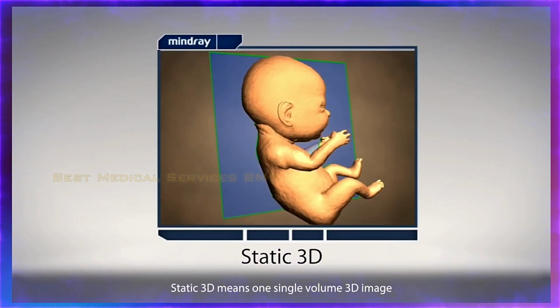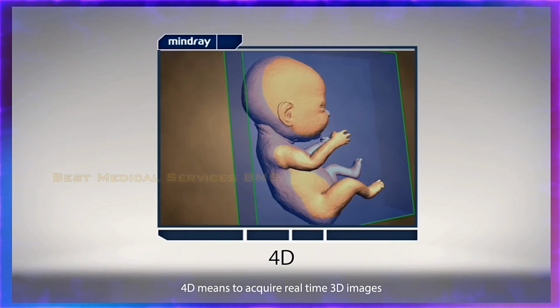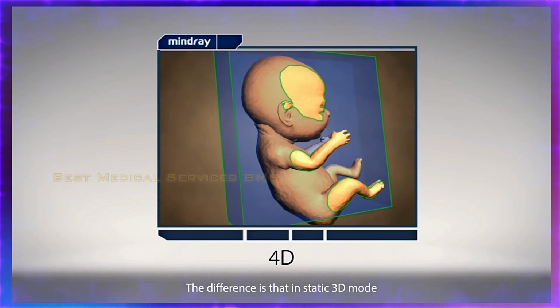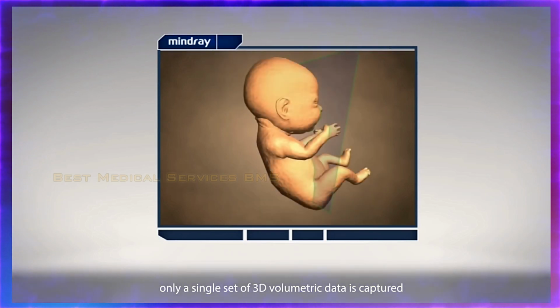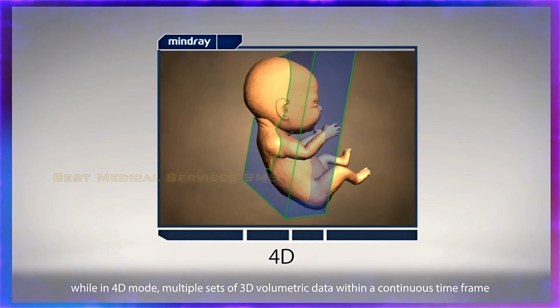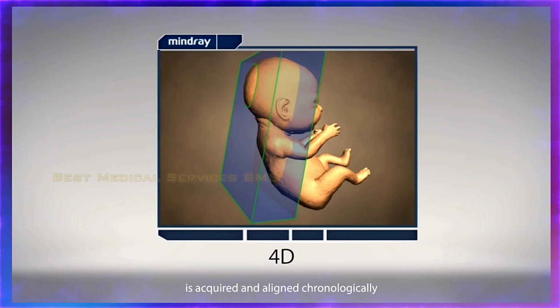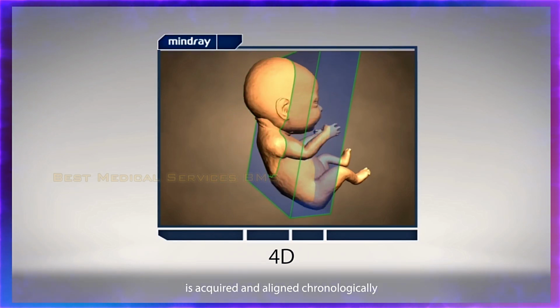Static 3D means one single volume 3D image. 4D means to acquire real-time 3D images. The difference is that in static 3D mode, only a single set of 3D volumetric data is captured, while in 4D mode, multiple sets of 3D volumetric data within a continuous time frame are acquired and aligned chronologically.